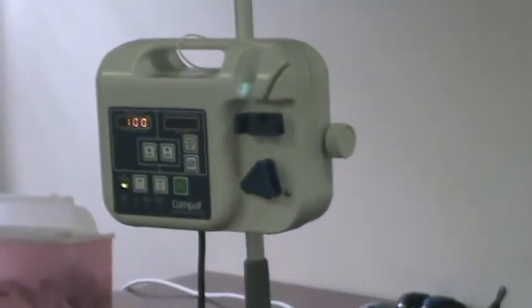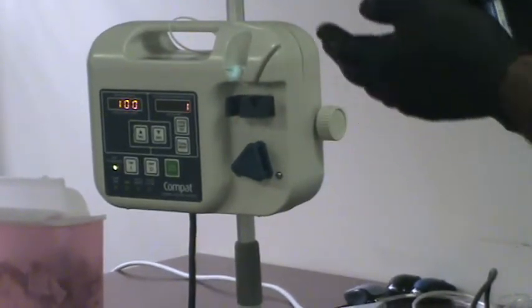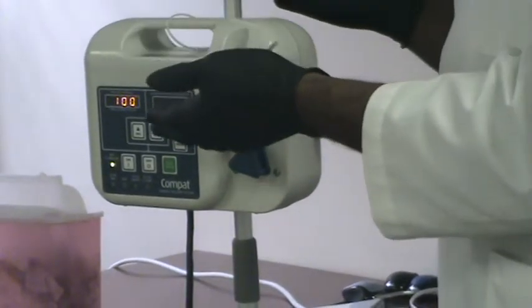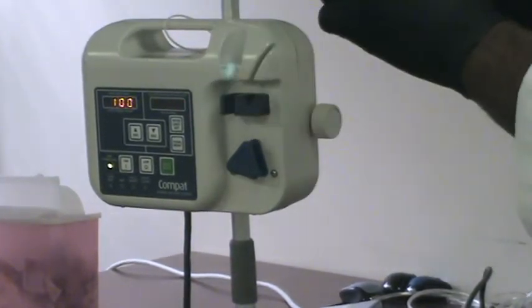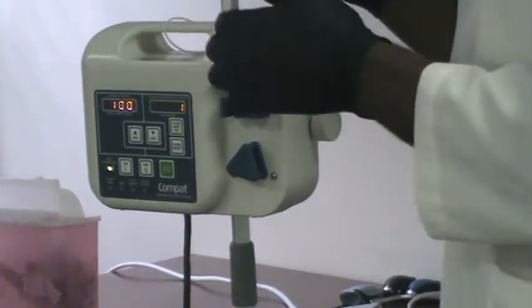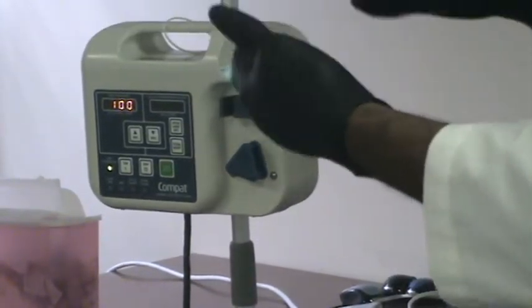Or you get the bigger bottle that comes in 1,500 ml. So if she's taking 1,200, the machine will automatically stop at 1,200, whatever the daily dose limit is.